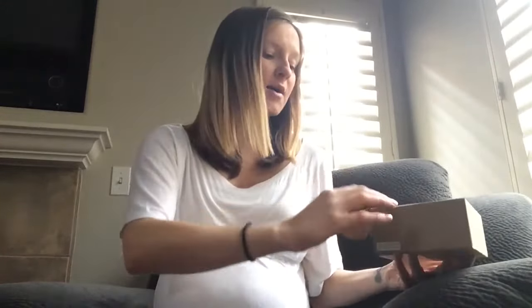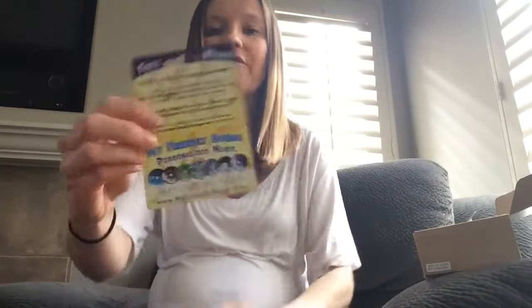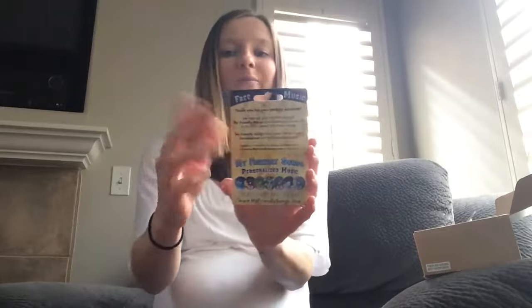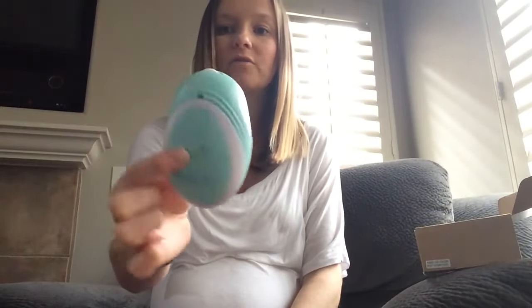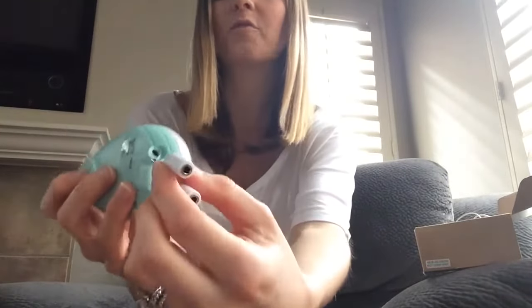I'm very happy with it and I definitely plan to use it in any future pregnancies. First off, this is the box that it comes in — it's a tiny little box. Inside the box it's basically just the main components. Mine actually came with this little card for music; I think it was something separate, maybe a promotion. But in the event yours might come with something like that — the instruction manual and then the actual fetal Doppler itself.